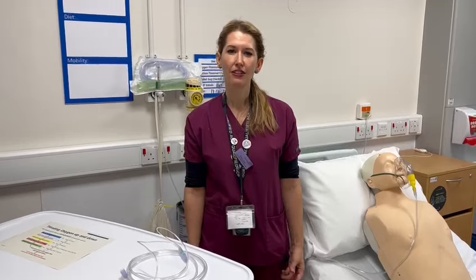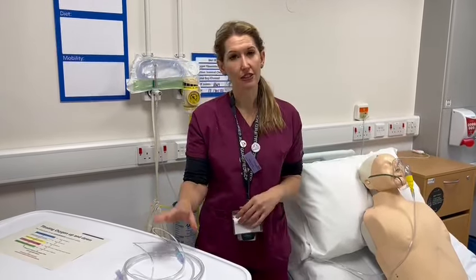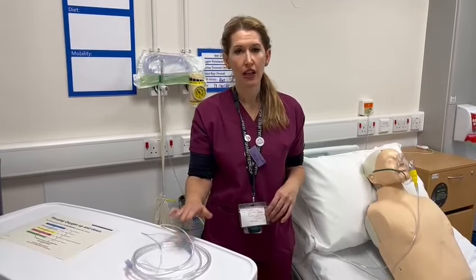Hello, my name is Kirsty Lane. I'm one of the respiratory ACPs working here at Harrogate Hospital. This video is going to go through how to convert your patient that's on venturi to the nasal cannula.